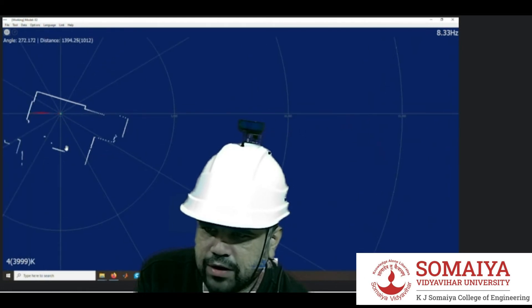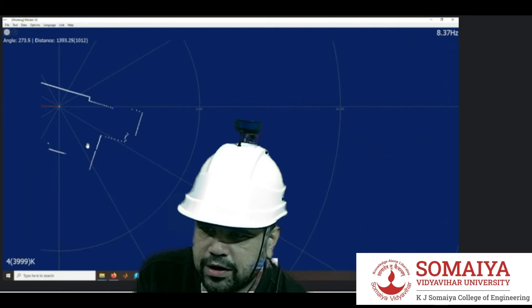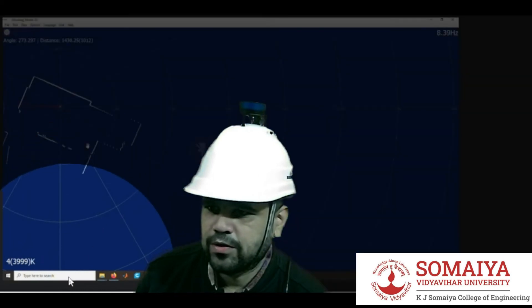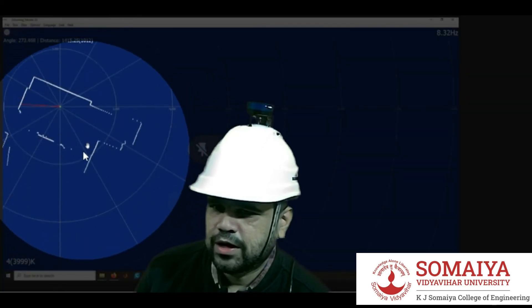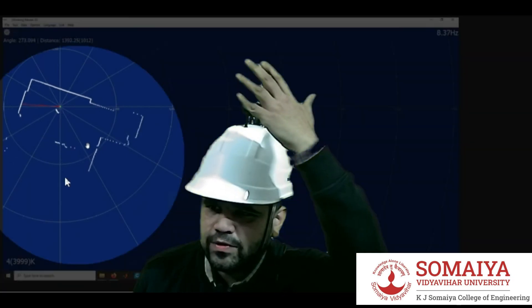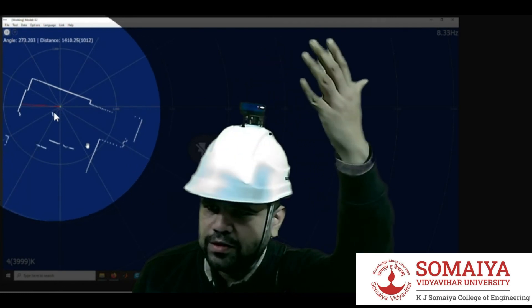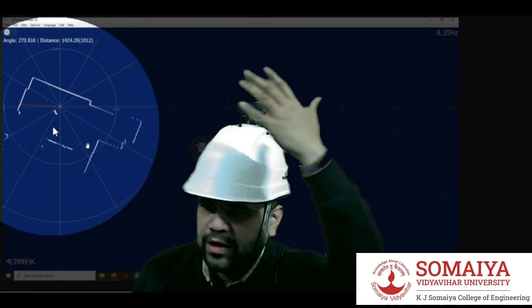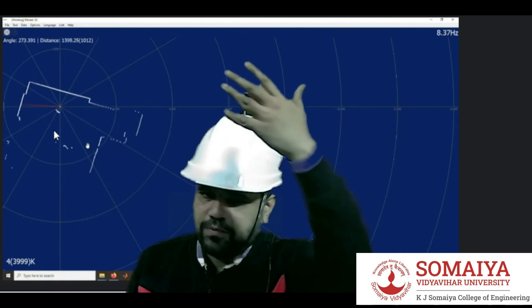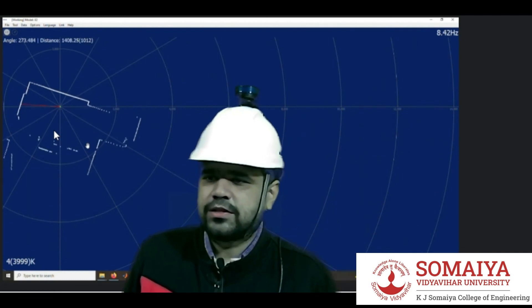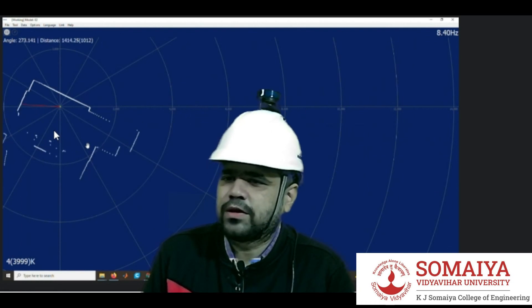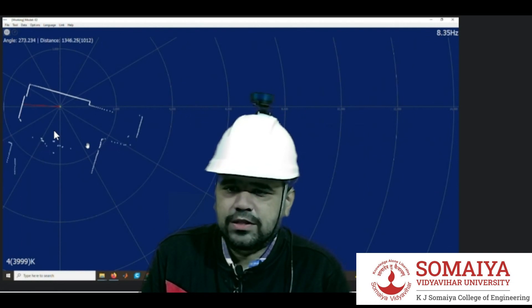Now I would like to show you how this particular technology can detect objects. You can see that this entire room is getting captured, and based on that, let us try and put some obstacle — that is my hand. If you can focus over here, you can see my hand moving front and back. Based on that, this LiDAR can give an alert that there is an object coming closer. This way it will help a blind person by giving information about the room and can also give auditory navigation to the blind person.